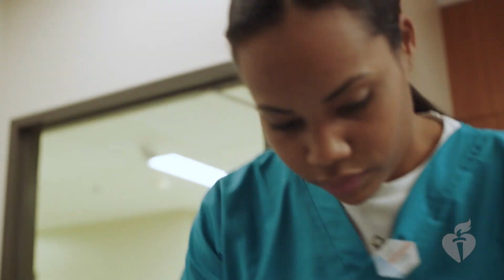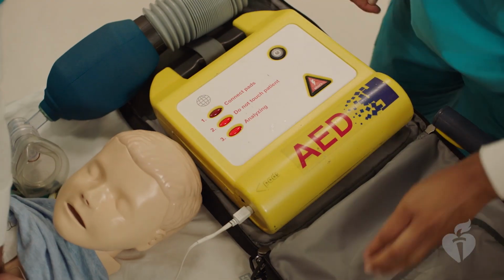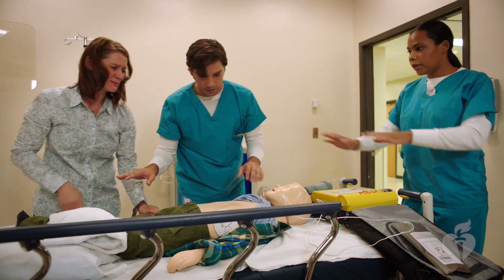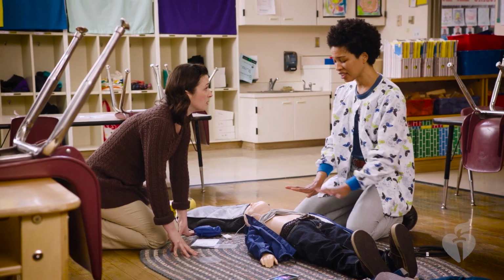Place one pad on the child's upper right chest, directly below the collarbone, and the other to the left side of the left nipple. After the AED is turned on, some units will tell you to press a button for the device to analyze the heart rhythm. Others will analyze the rhythm automatically. The AED may take about 5 to 15 seconds to analyze the rhythm. The AED will deliver an audible prompt when it's ready to analyze the rhythm, followed by a prompt to clear the child or infant. The rescuer should strongly repeat the command to clear, checking visually to be sure that all rescuers and bystanders receive the command.